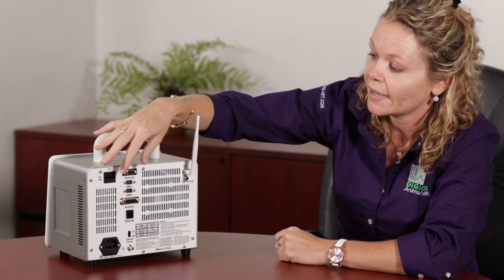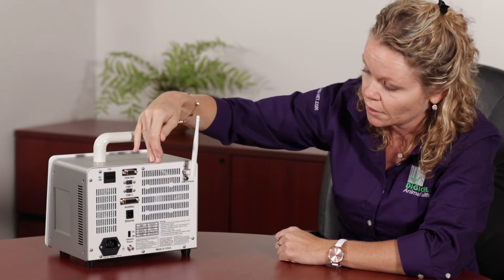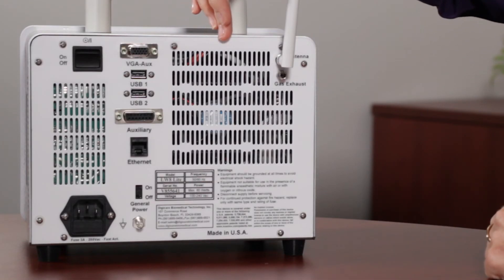The back of the monitor does have a lot of vents, as you can see. The vents are really important. You want to make sure that they're not blocked. You don't have the monitor in a small area. It needs to be well ventilated. Always check your back vents. Make sure there's not a ton of hair or dust or anything like that and just keep this area nice, clean, and open.